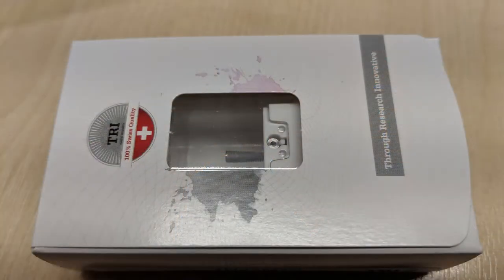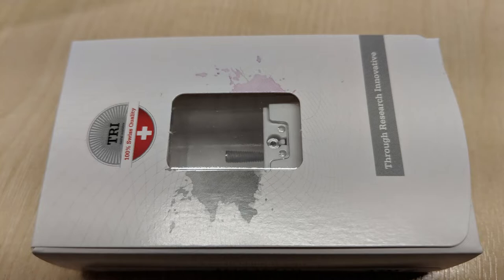Obviously many of you will never have seen an implant before, so what I'm going to do straightaway is show you what an implant looks like. This may be a little bit difficult to see, but this is how they come to us in the box. If I angle that slightly you can just about see the implant in there, and this is of course sterile because it's going to be placed in the bone of your jaw, either upper or lower.